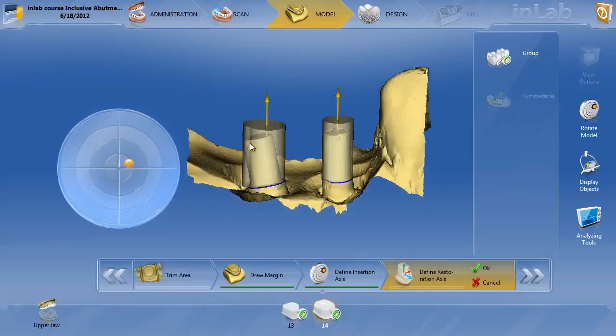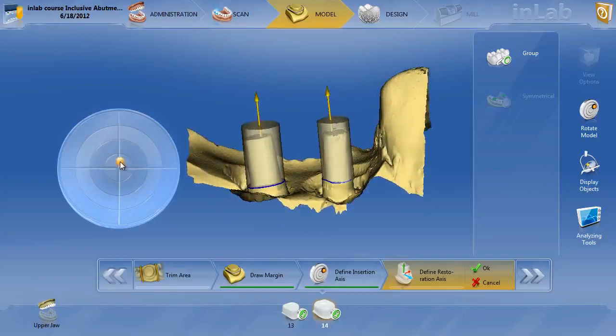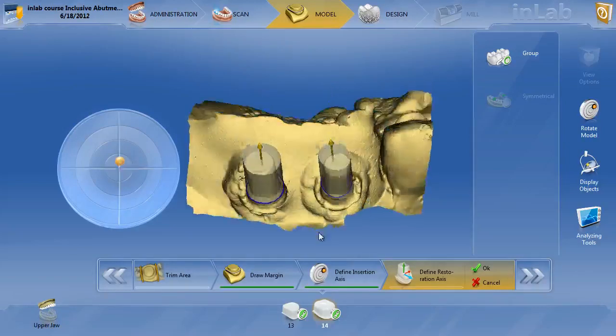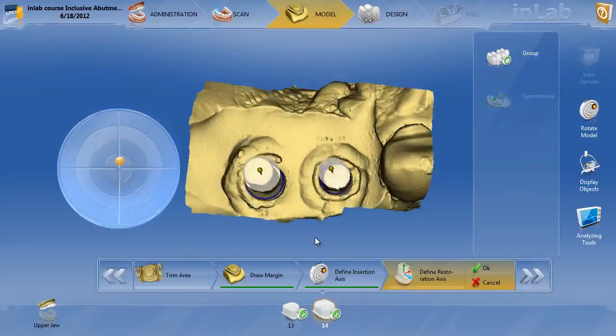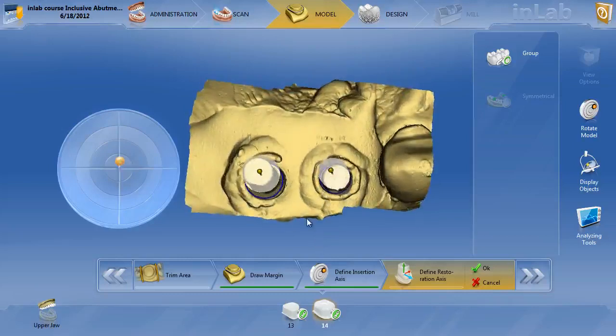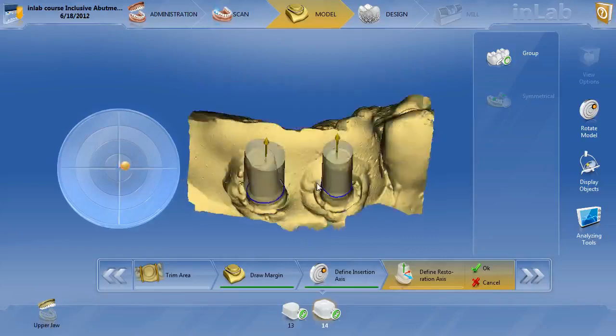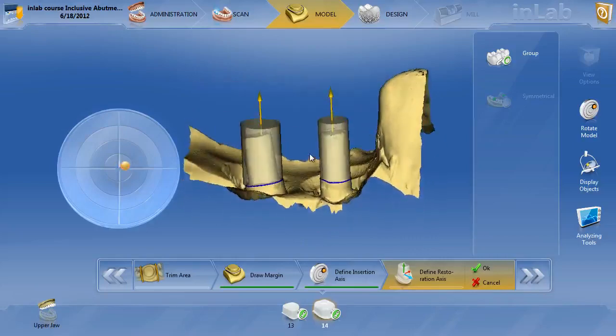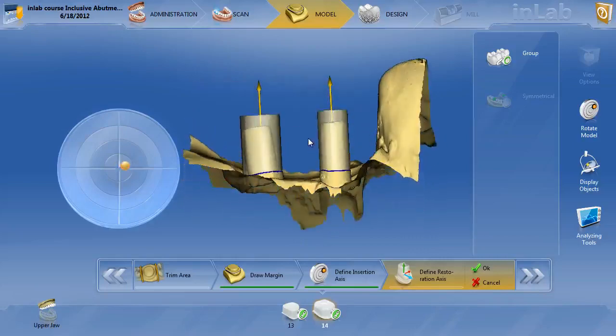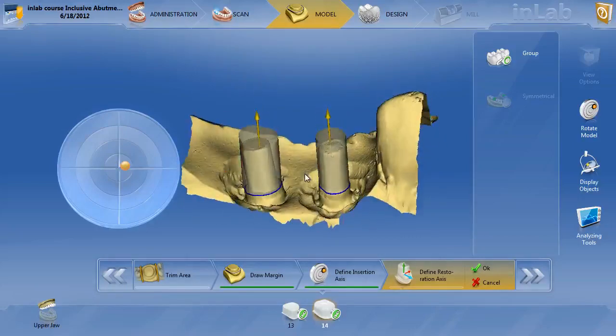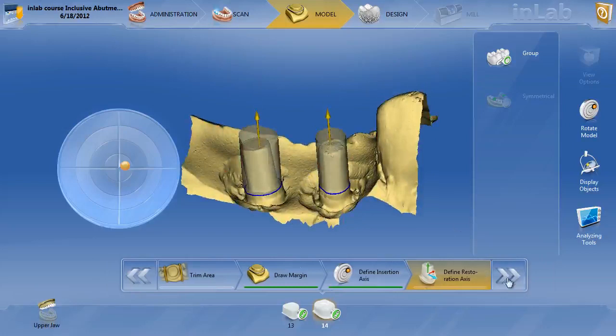You can see that's not going to quite work here because it's cutting off here a little bit, so we want to just parallel the restorations, both from the top angle and the buccal-lingual angle, just to make sure that everything is okay. And that looks good. We'll hit okay, and we'll go ahead and move forward.